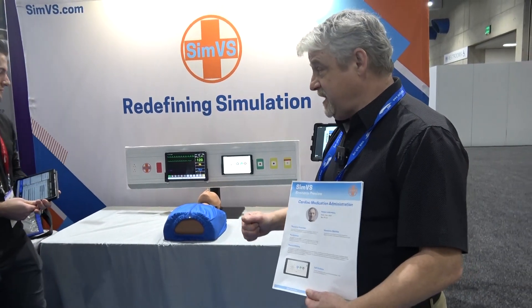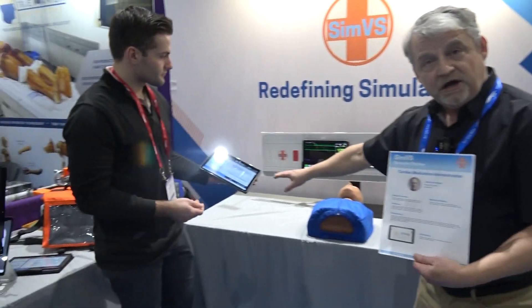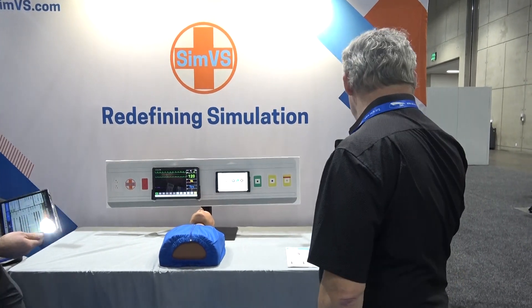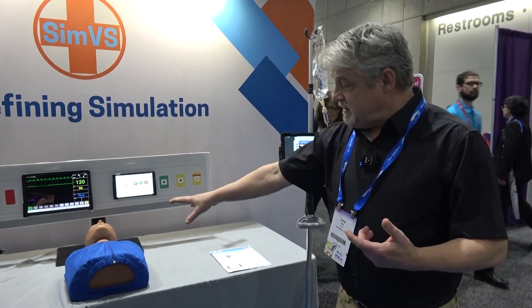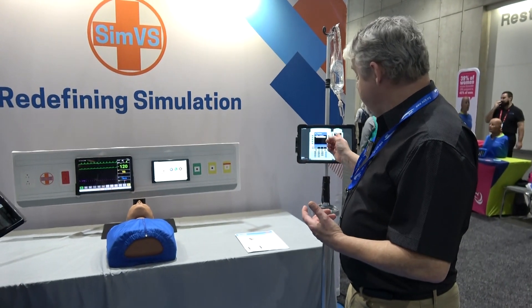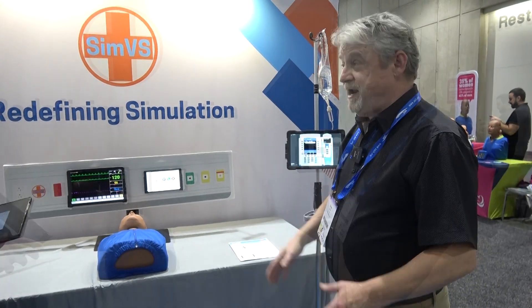We will dive into the scenario. We have the scenario physiology pre-programmed on the instructor tablet. In this scenario I'll be the provider, Jake will be the instructor changing the physiology. As a little bit of background, this patient is in for a cardiac condition and is on Esmolol, so we will start the scenario now.